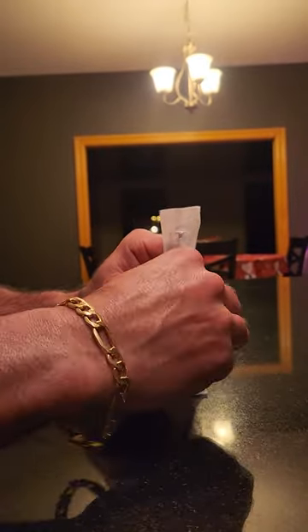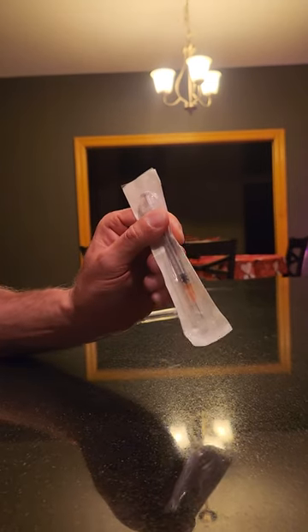They're already loose, so what you want to do is set it down like that and just press till it crunches. That's it — it's fastened.